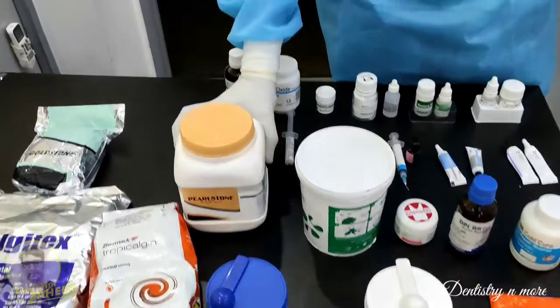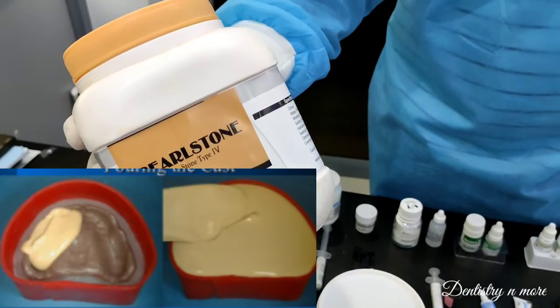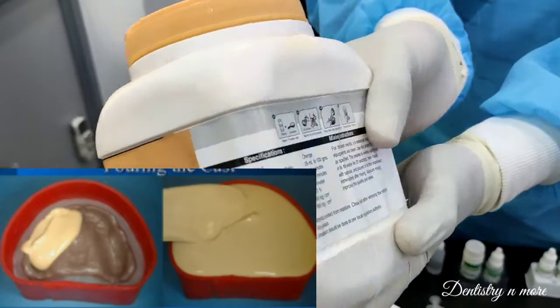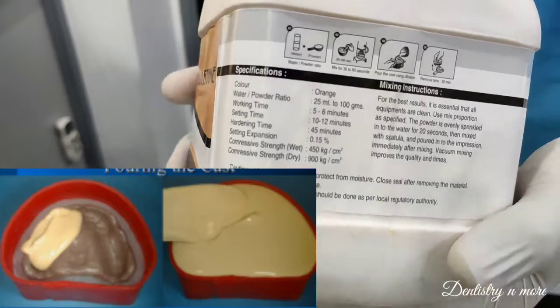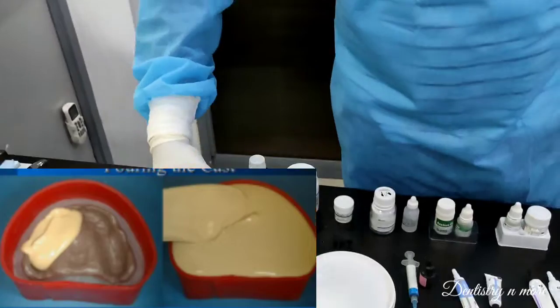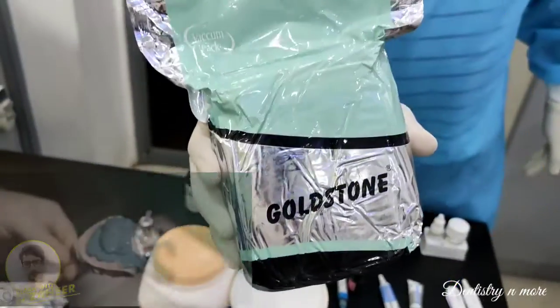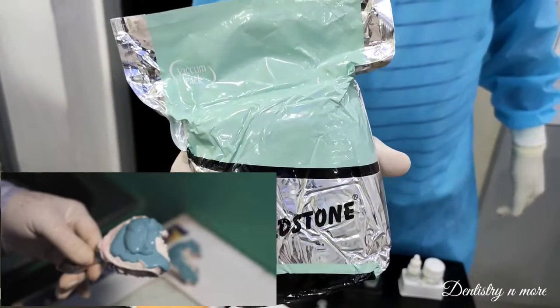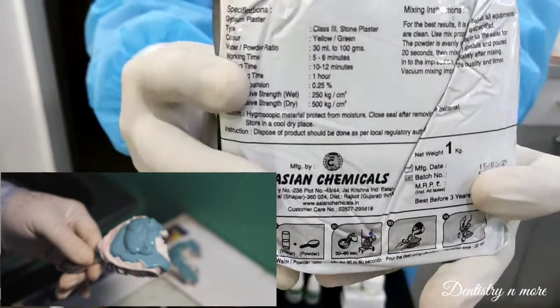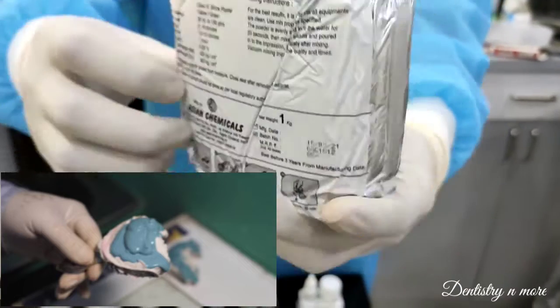Next we go to basic stones. This is Type 4 die stone — we use this powder to create casts for various diagnostic purposes, denture fabrication, fixed partial denture fabrication, and orthodontic purposes. Similarly, we have Gold Stone, which is gypsum plaster Type 3, with lesser properties compared to the previous one — all details are mentioned on the pouch.